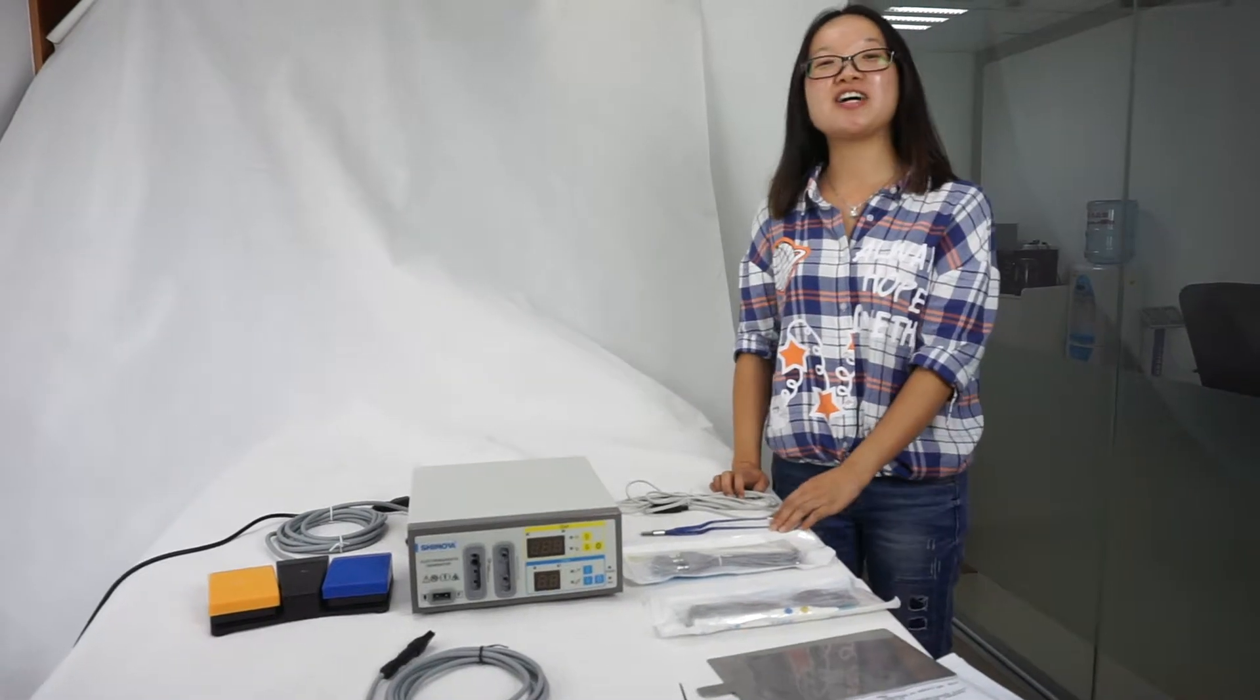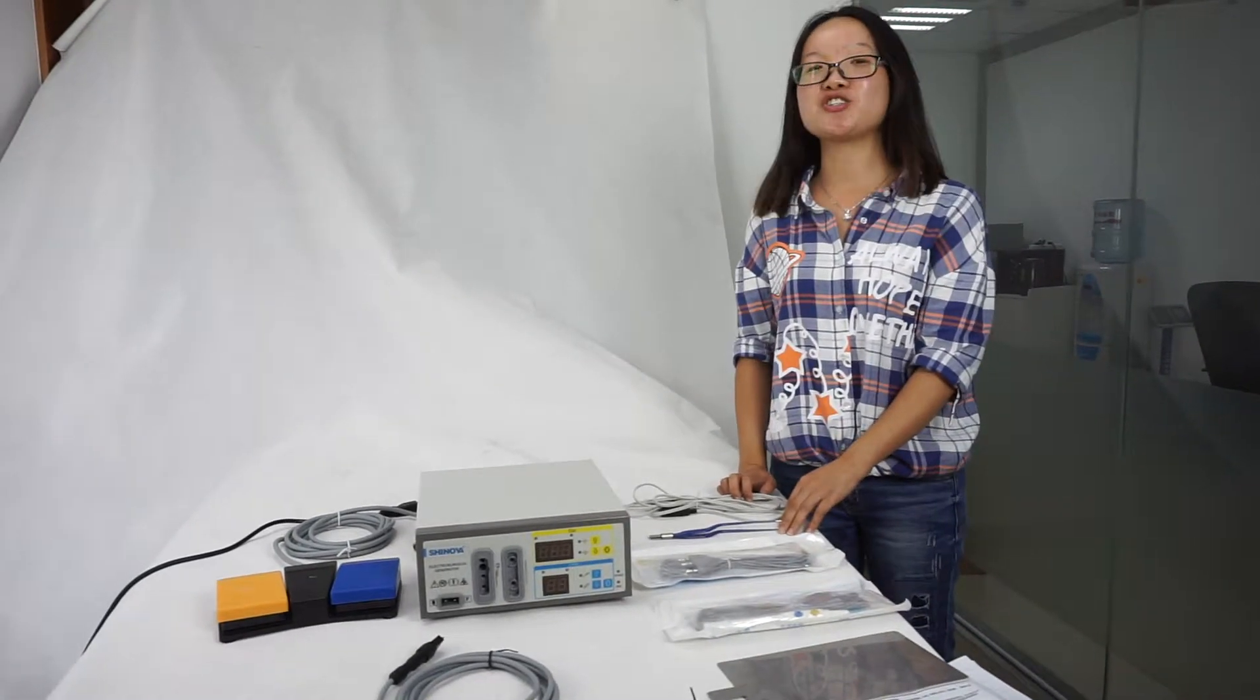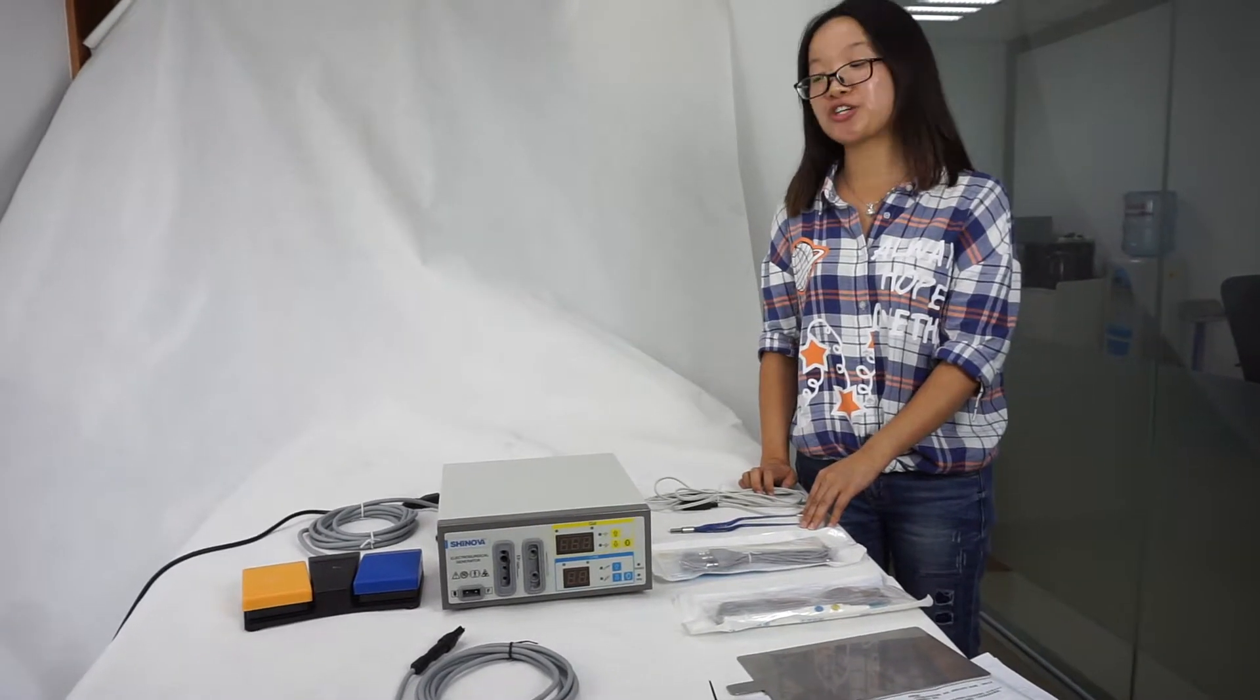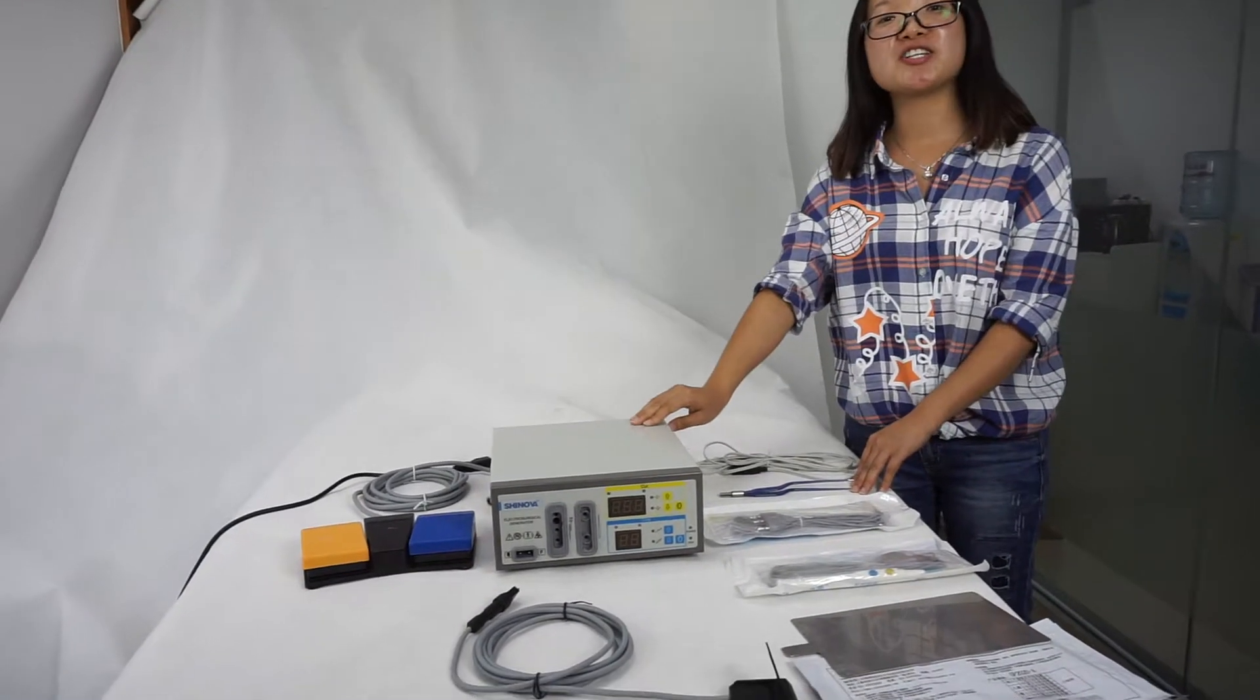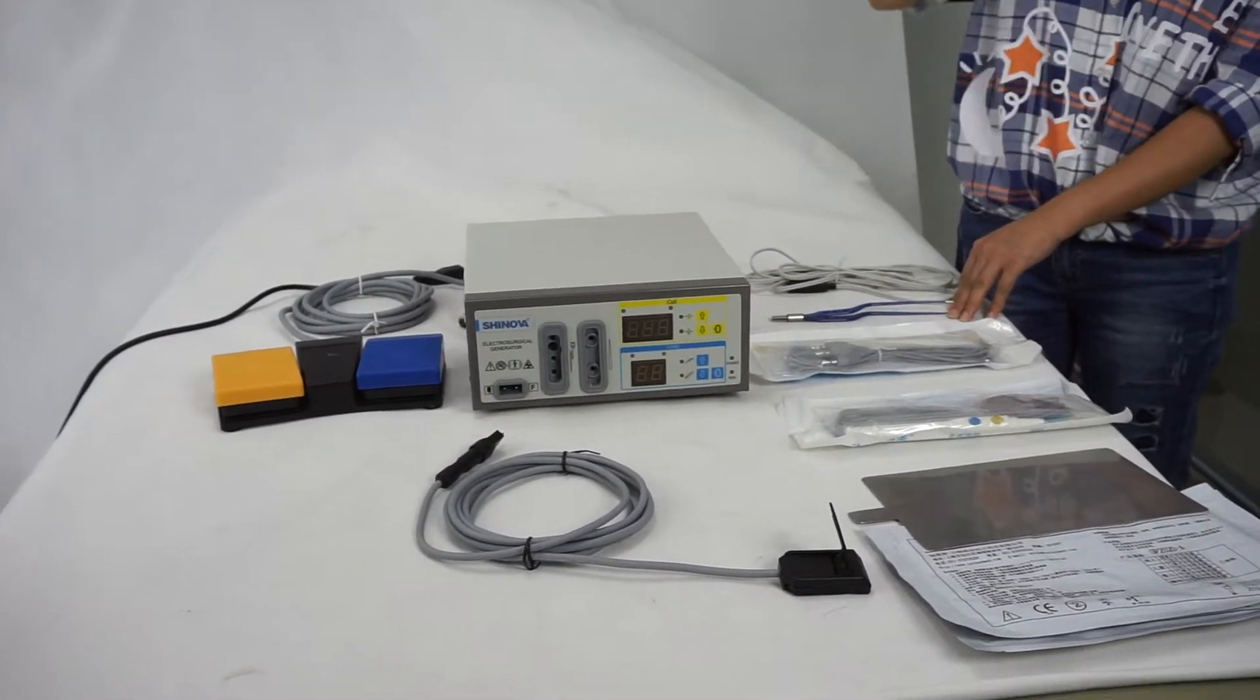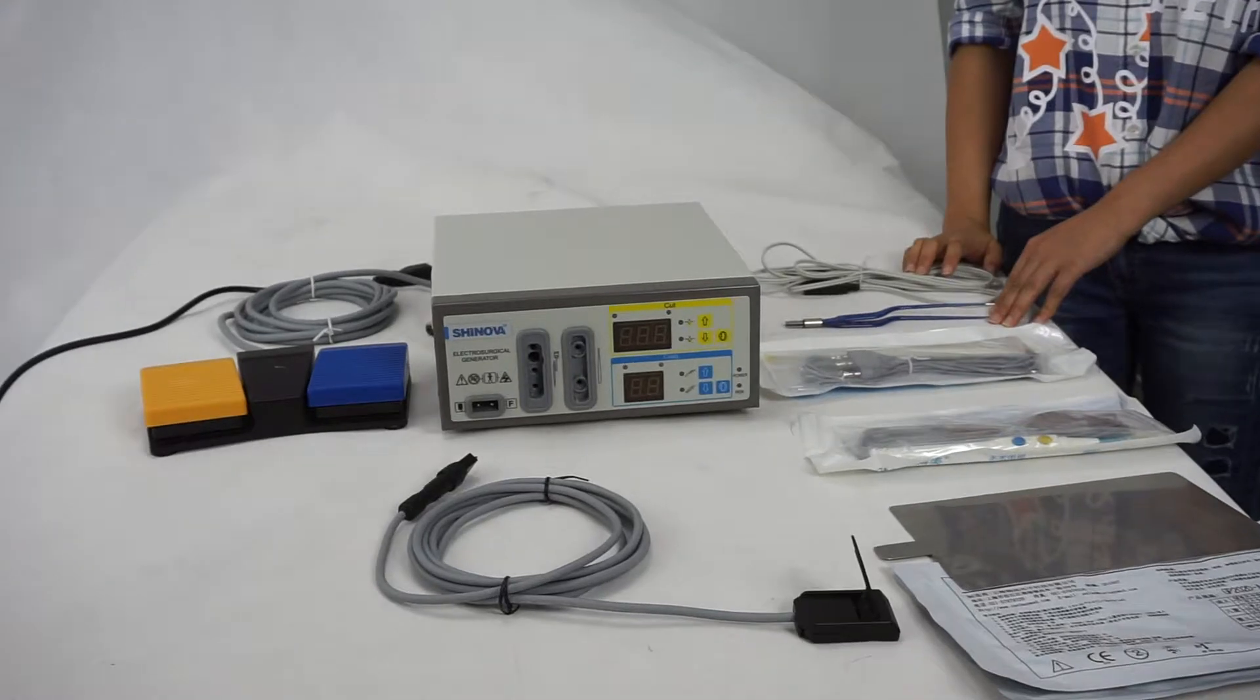Hello everyone. Today I would like to introduce our product, High Frequency Electrosurgical Unit. Model number is EU100. This can be applied for general surgery.